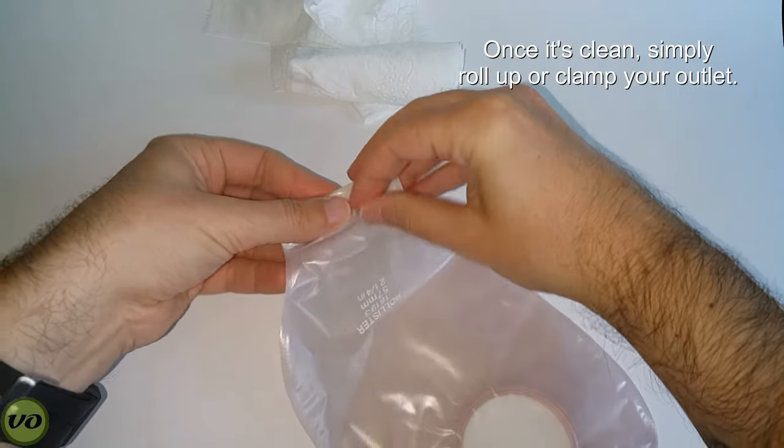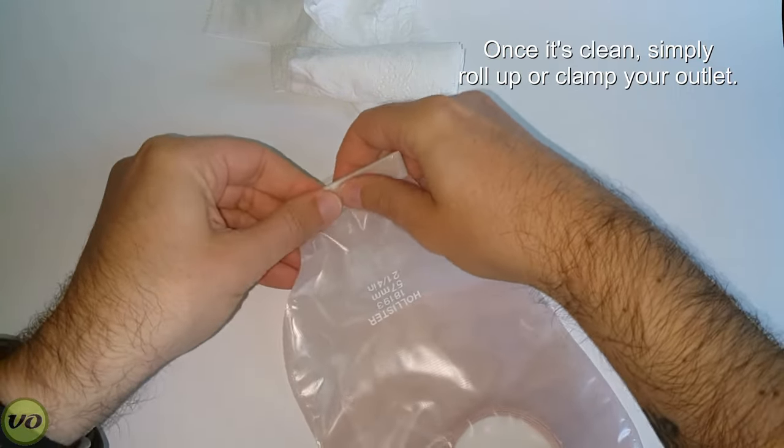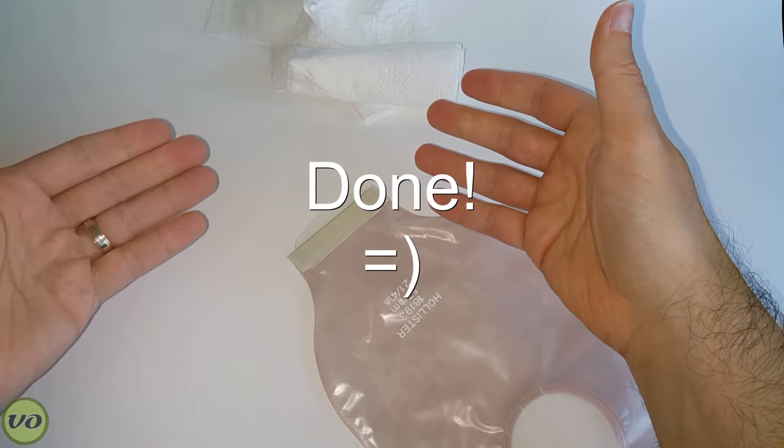Now you can put some pouch deodorant in there, or if you use gelling product you can put it in at that time. But once you're done that, you just basically close everything up and you're good to go.